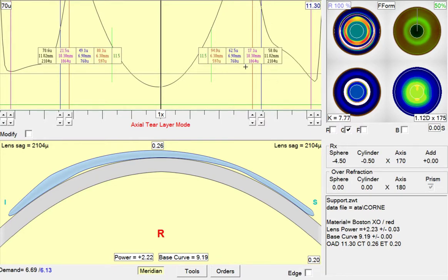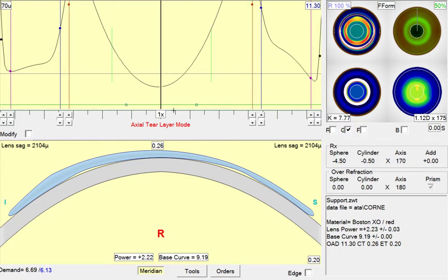Of course, when you're actually making the change, it's probably a good idea to write down that initial number. And you'll make the same kind of adjustment.